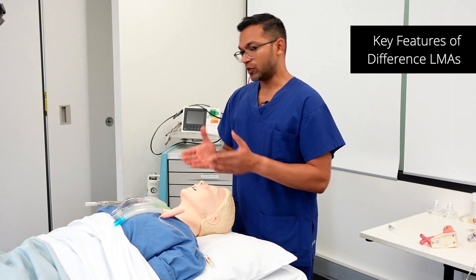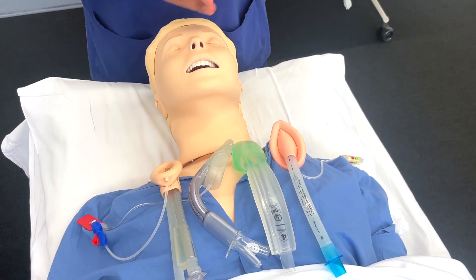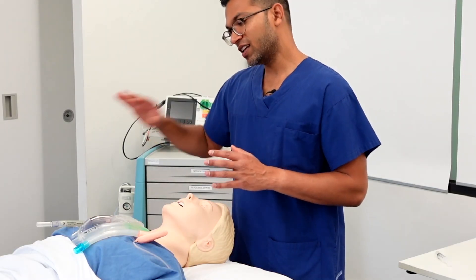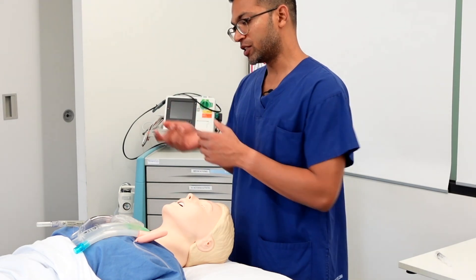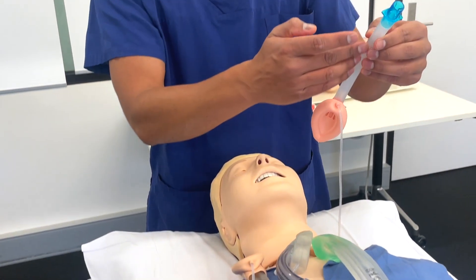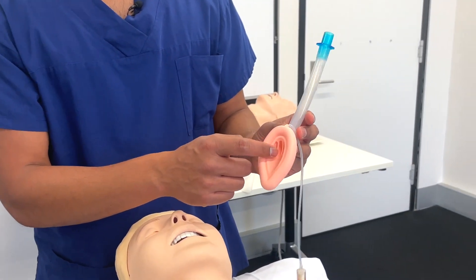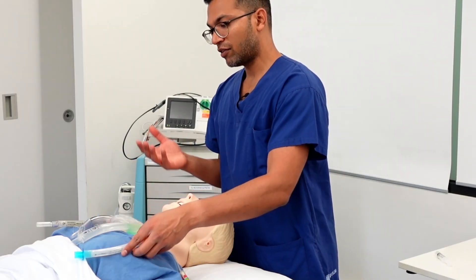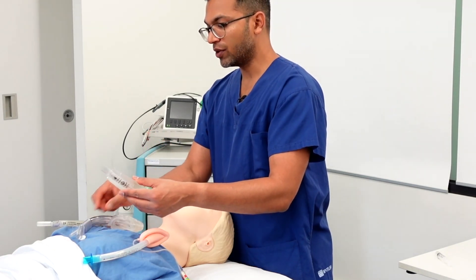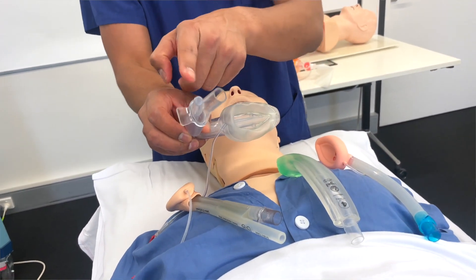Let me go through key differences between the classic LMA and second generation LMAs. There are quite a few second generation LMAs including the iGel, the Supreme, and the ProSeal, and there's also the fast-track which is purpose-built to allow intubation through it. The classic LMA has an airway tube, an inflatable cuff, and an aperture for ventilation. Second generation LMAs have a gastric port which sits often at the tip and leads out to the outside.